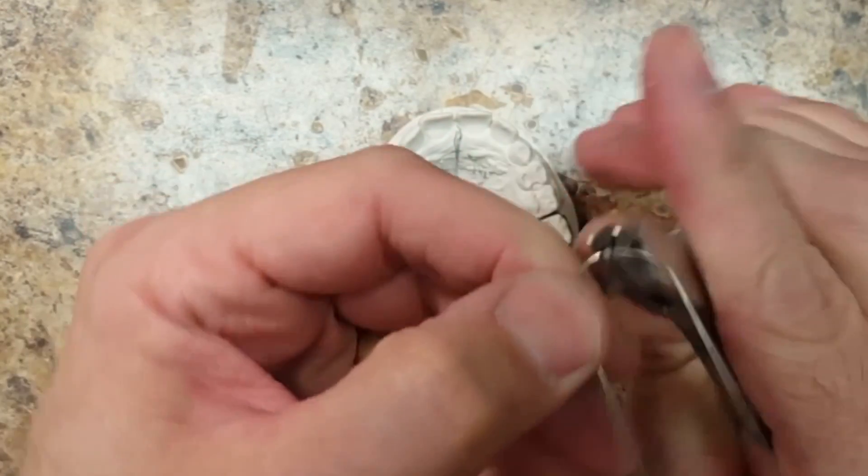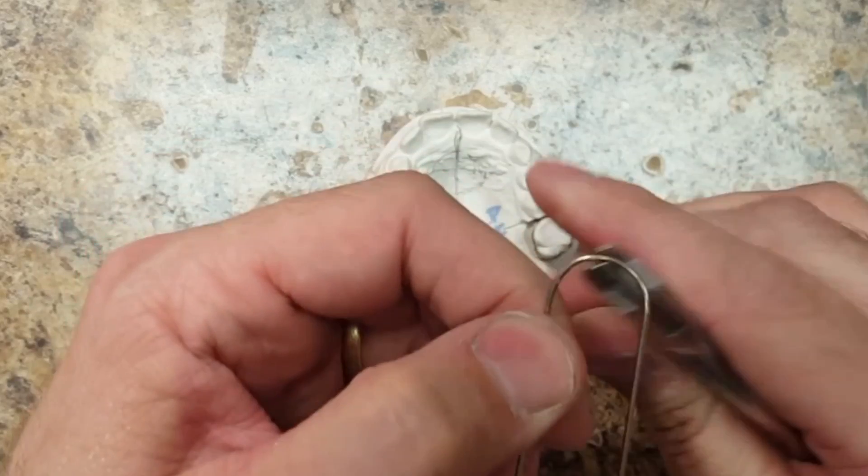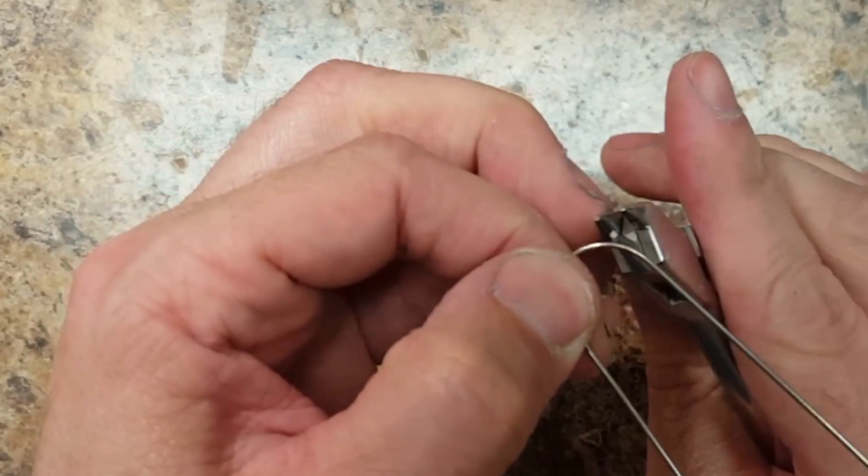I typically put the perpendicular line going directly across from canine to canine on the mesial line. I like to use my 3-prong pliers to make minor small adjustments to keep that one millimeter off the tissue equal in all areas.